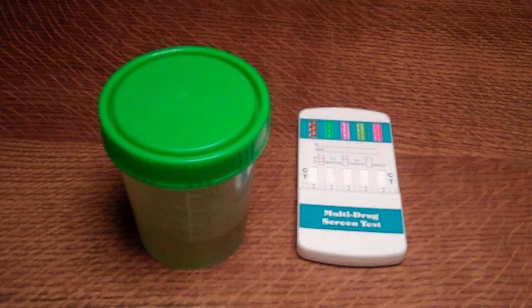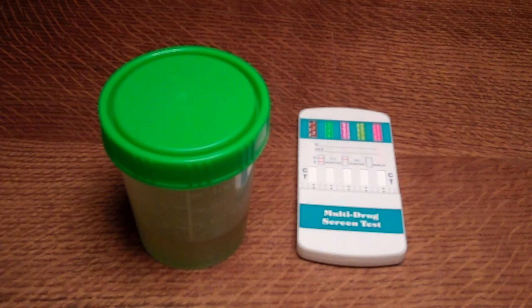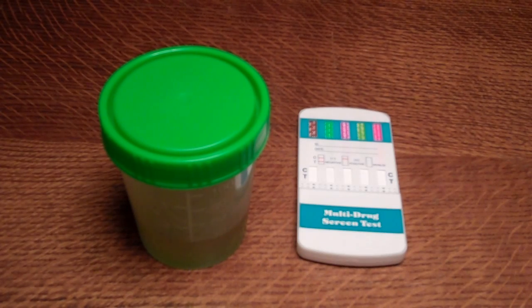Urine testing will give you a window period for detection in the range of between three and five days for most drugs. If you compare that with saliva testing, you've got much shorter window periods of detection for the majority of drugs. For certain drug groups, particularly cannabis and methadone, you can be looking at only a matter of hours after the drug's been consumed for saliva testing.